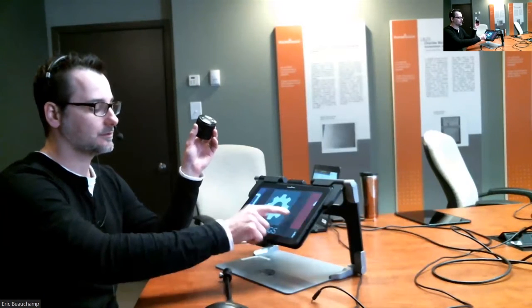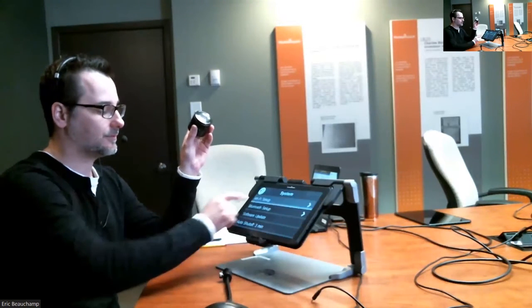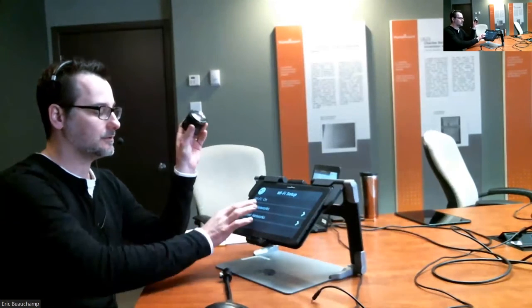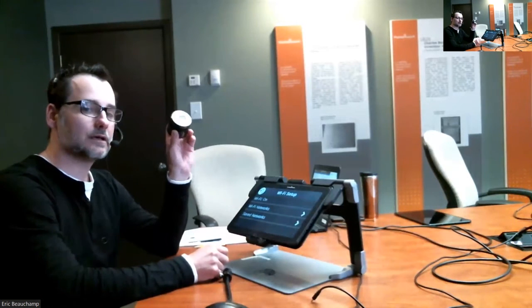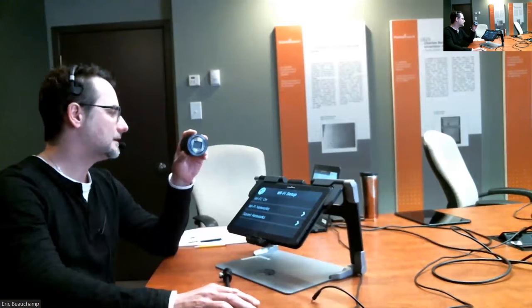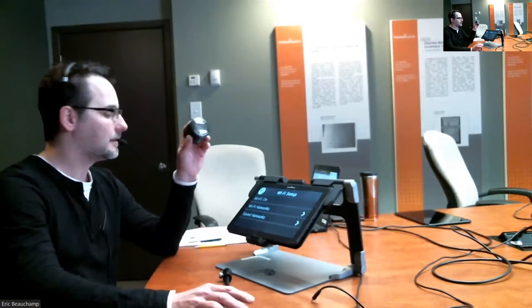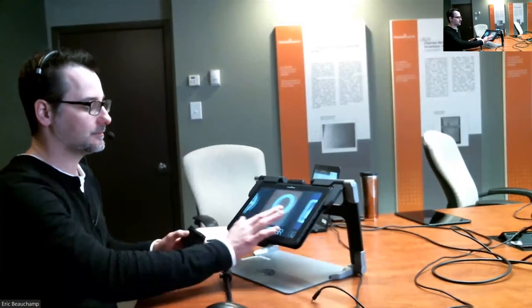in settings, you go into system, Wi-Fi setup, you can allow that, and then you can select Wi-Fi network, and you'll find the network of that camera, and then you'll be prompted for a password, and again that password is 1, 2, 3, 4, 5, 6, 7, 8. And once it's paired, usually the distance icon will show up.